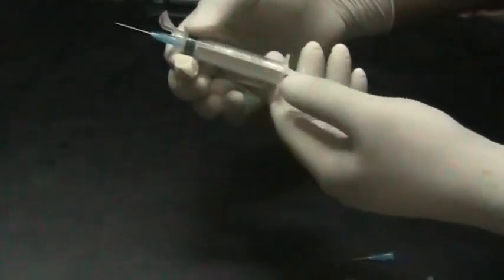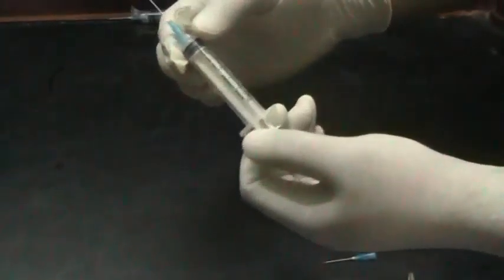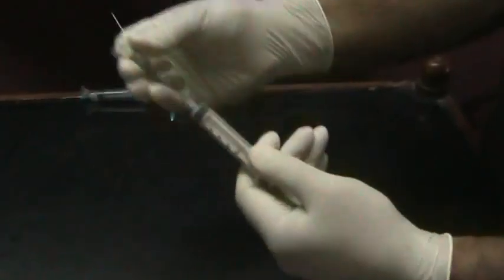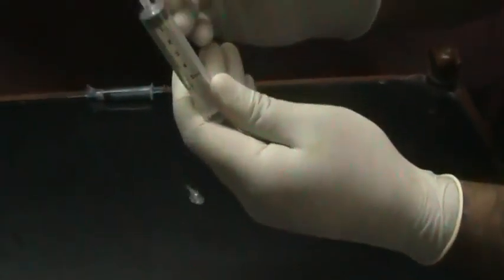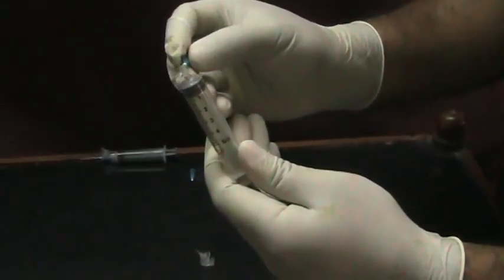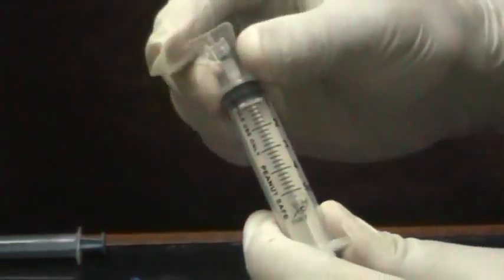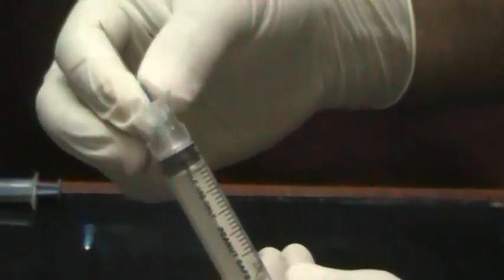This is the newly introduced peanut safe syringe. Its peculiarity lies in the presence of a circumferential groove around the needle connecting hub of the syringe and a protective cap. The cap is well designed to permit usage as any ordinary syringe.